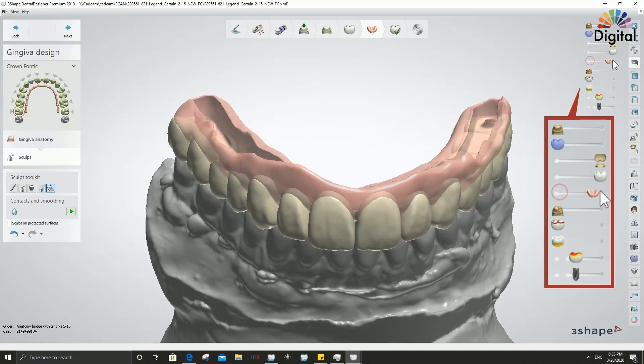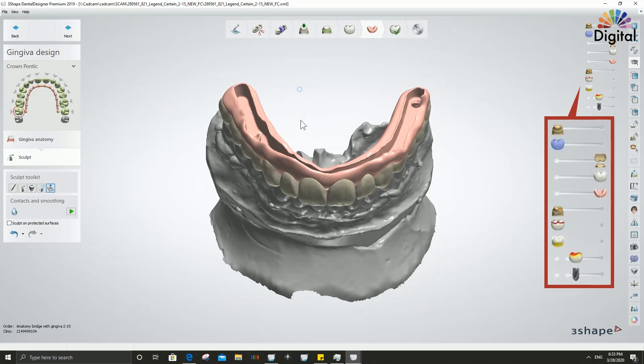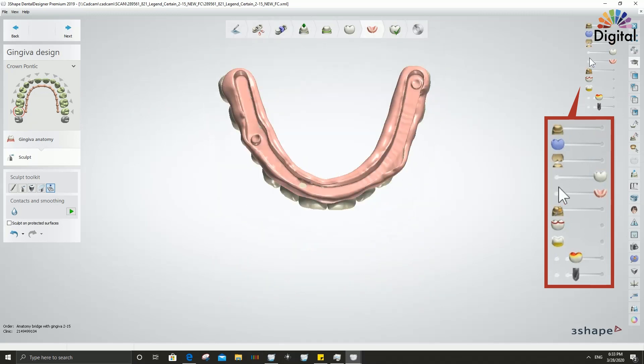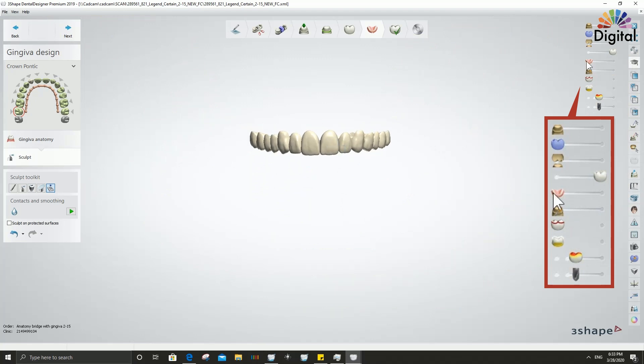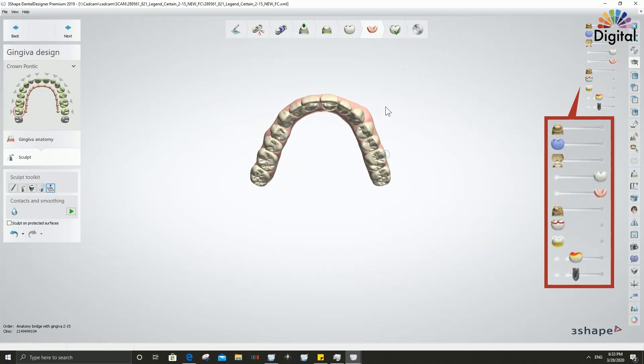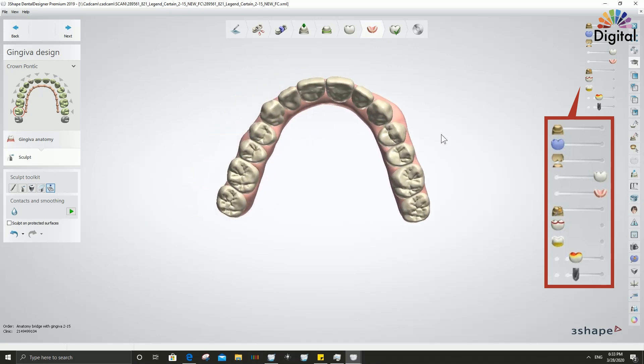For this case the order setup is the same as a denture without the denture module. I set one crown on number seven and all other teeth are pontic with gingiva. That's why you can see a small margin underneath number seven — after milling you'll just barely see a tiny bit just after the gum line.